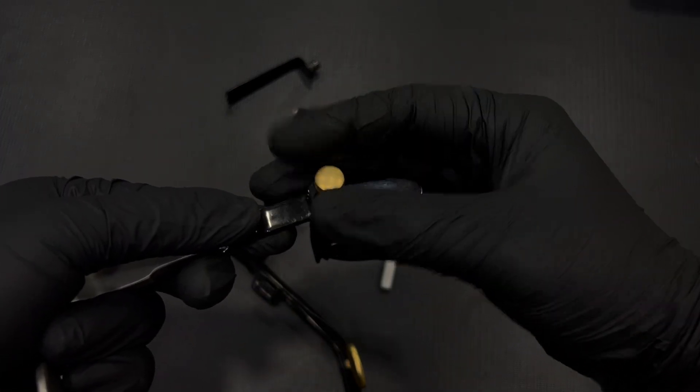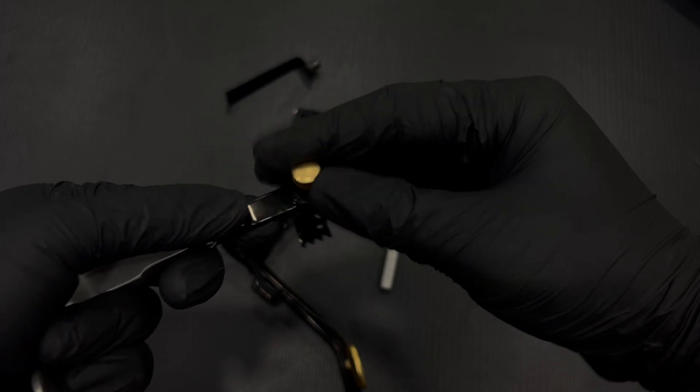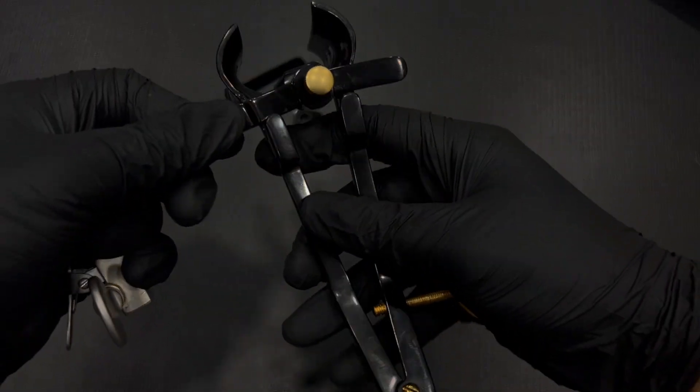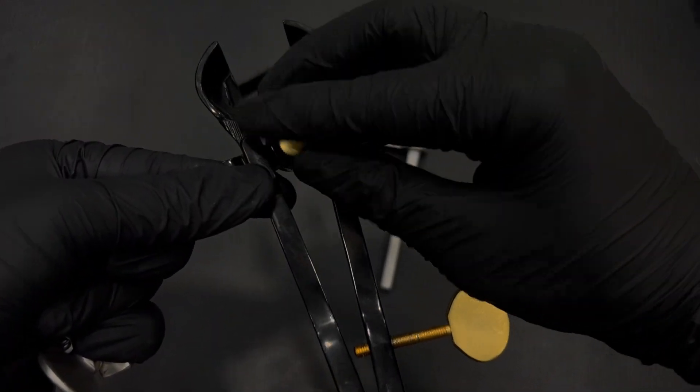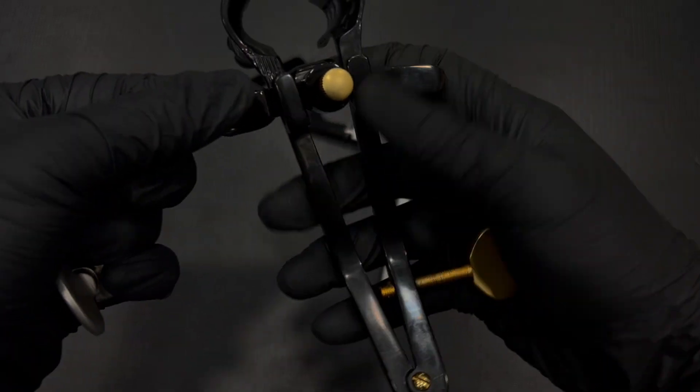Allen Surgical's dedication to quality shines through in every detail, from the ball-snap loading mechanism that facilitates rapid and secure attachment, to the multiple blade sizes that allow for optimal customization.